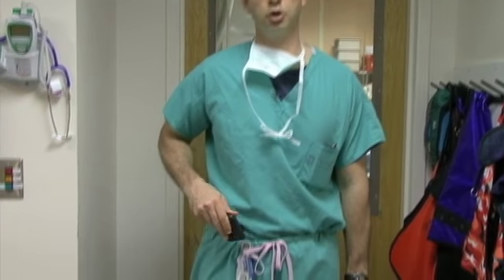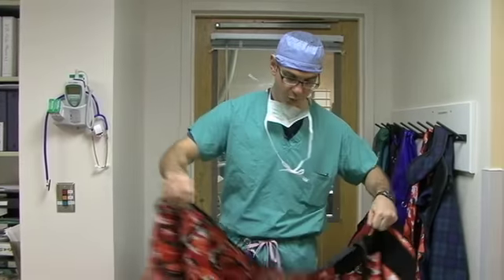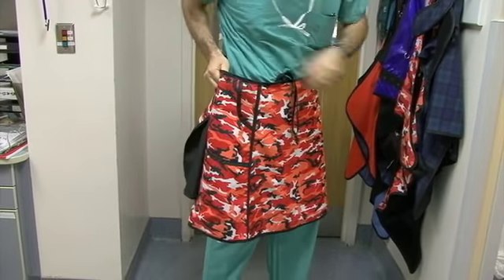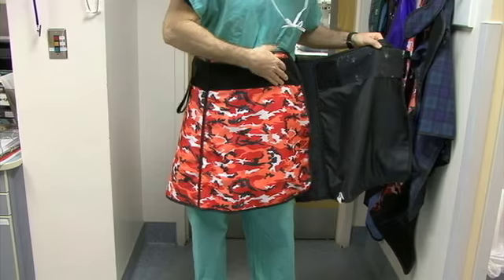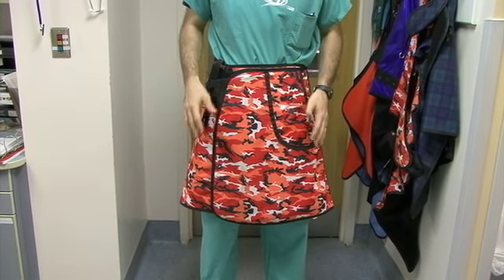The first step to putting on your lead is putting on your skirt. Now you may want to take your pager off first because it can hurt to have your pager on when you put your skirt on. Now hold your skirt out in front of you and then rotate it so that you can reach behind you and grab the other side with your right hand. Then take the Velcro and fasten it tightly around your hips. You don't want it to slip up and down when you're doing your procedure.